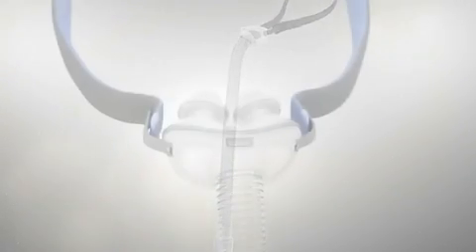The mask's one-piece frame features built-in flexible stabilizers, QuietAir vent, and integrated short tube with swivel.